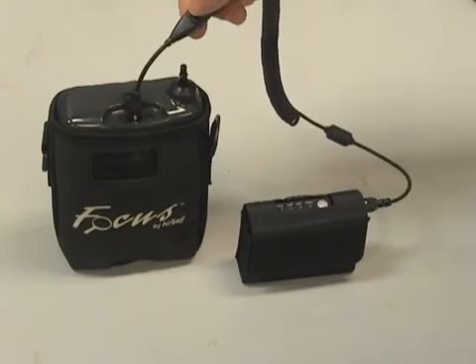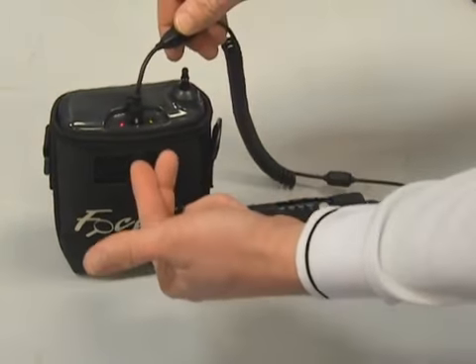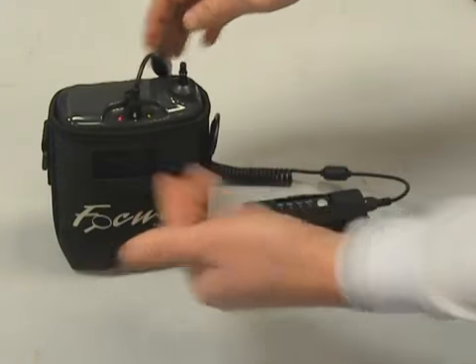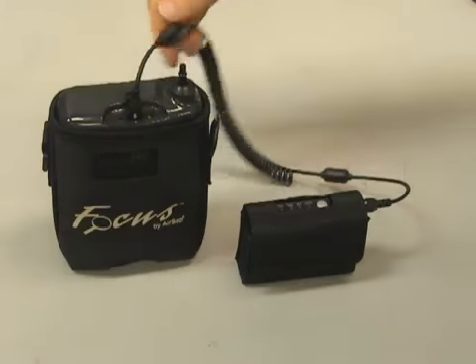One, two, three. Both LEDs will remain lit — the unit is in test mode. It will begin auto-pulsing. To get the unit out of test mode, simply turn power off to the unit.